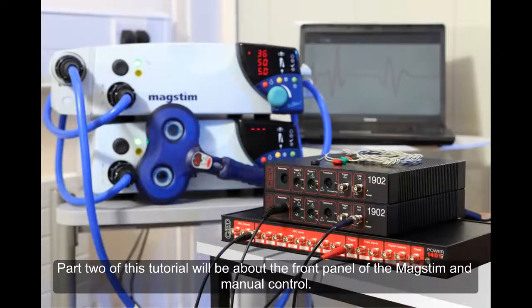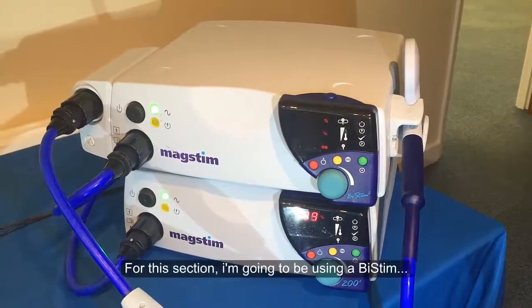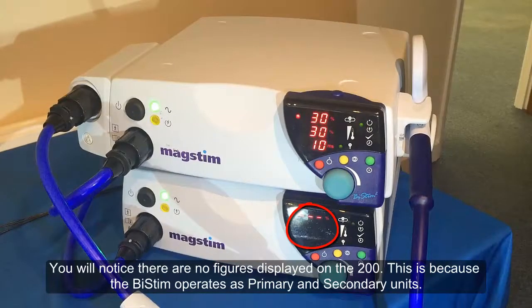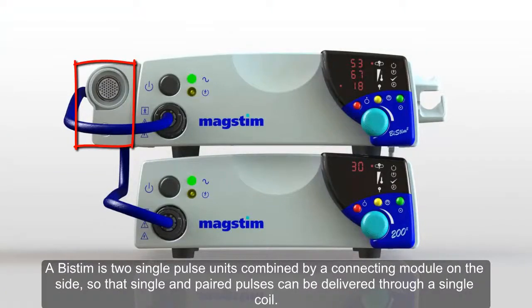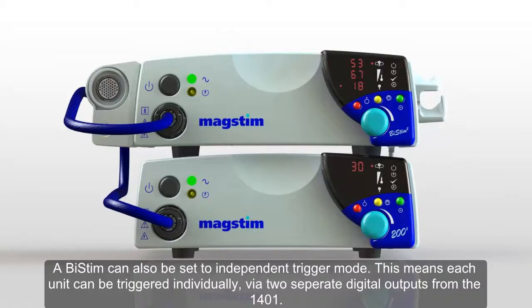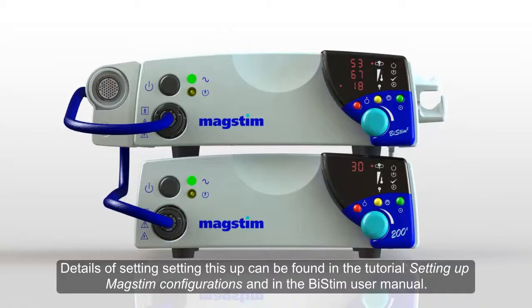Part 2 of this tutorial will be about the front panel of the MagStim and manual control. Having turned the MagStim on, it will run through a self-check. For this section, I'm going to be using a BiStim. You will notice there are no figures displayed on the 200, because the BiStim operates as primary and secondary units. A BiStim is two single pulse units combined by a connecting module on the side, so that single and paired pulses can be delivered through a single coil. A BiStim can also be set to independent trigger mode, meaning each unit can be triggered individually via two separate digital outputs from the 1401. Details of setting this up can be found in the tutorial setting up MagStim configurations and in the BiStim user manual.